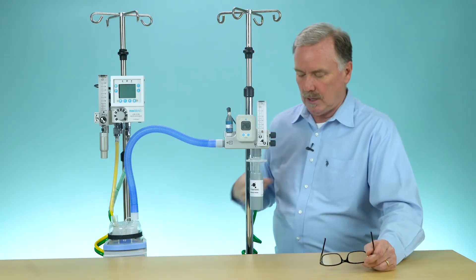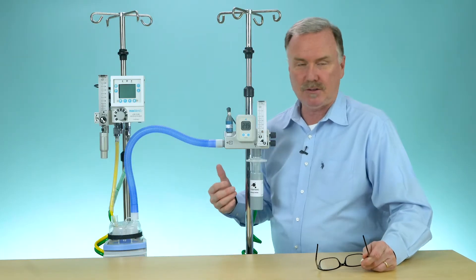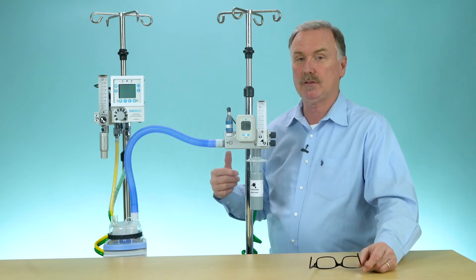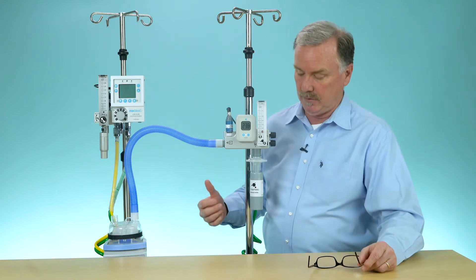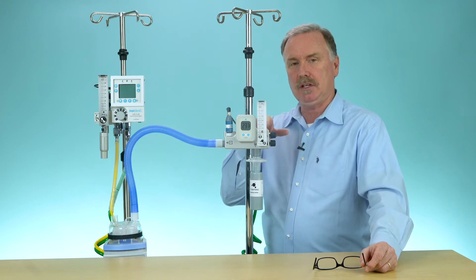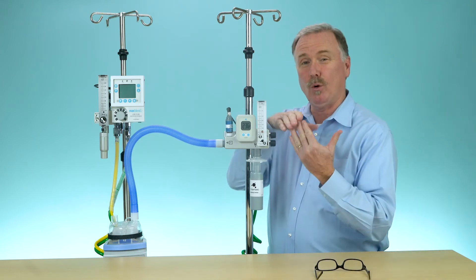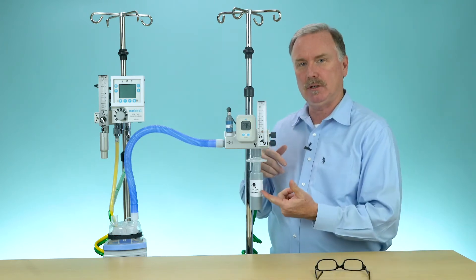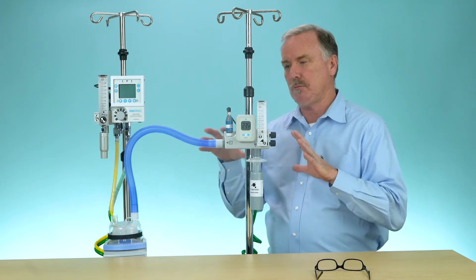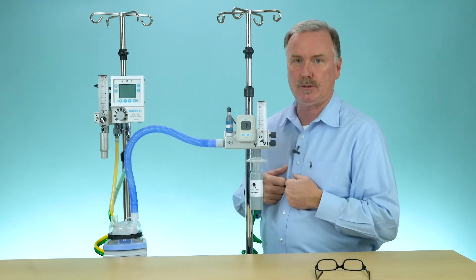Our Max Venturi utilizes the Venturi principle. That's not a gas law we invented — it's a gas law that Mother Nature invented. You pass a given gas past an angle and it causes an entrainment. So if you start messing with the entrainment, you mess with the FiO2.